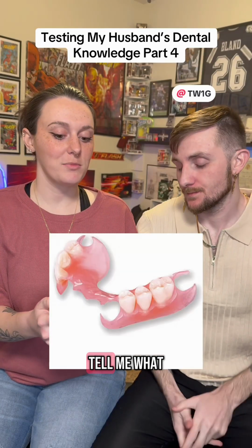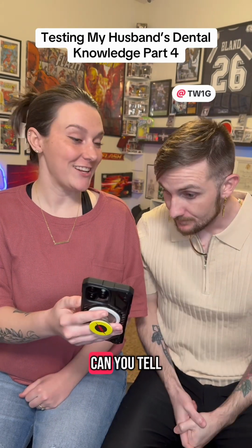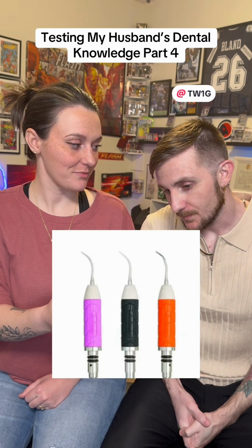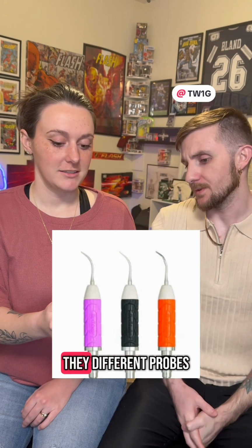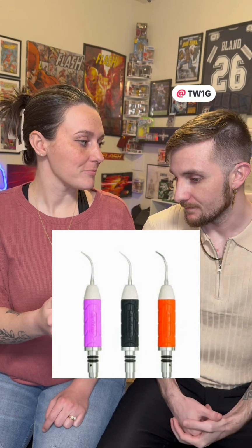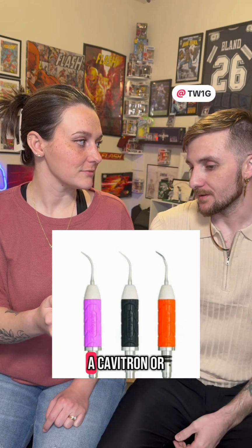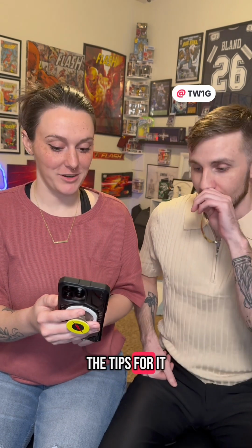Okay, can you tell me what this is? A partial? Yes. Can you tell me what these are? Are those like different scalers? Not scalers. Are they different probes? They're not probes either. They are used for hygiene though. Looks like something you would use instead of a Cavitron or whatever. So you have the Cavitron unit. Like the different tips for it? Yeah, those are the tips for it. Oh, okay.